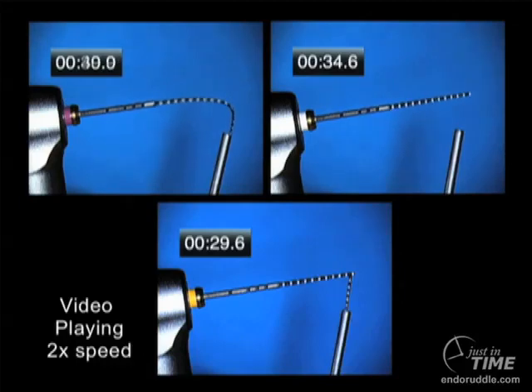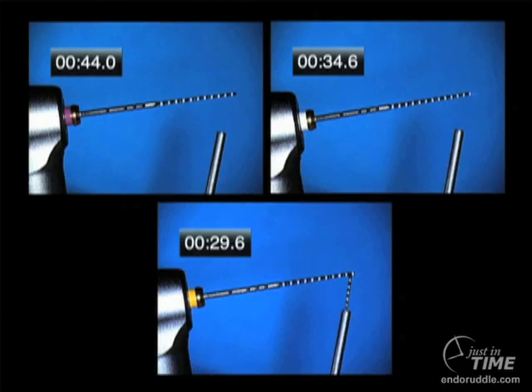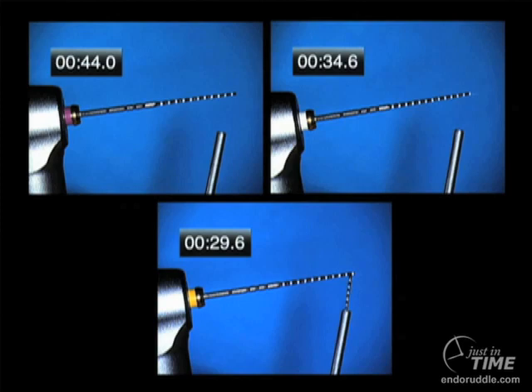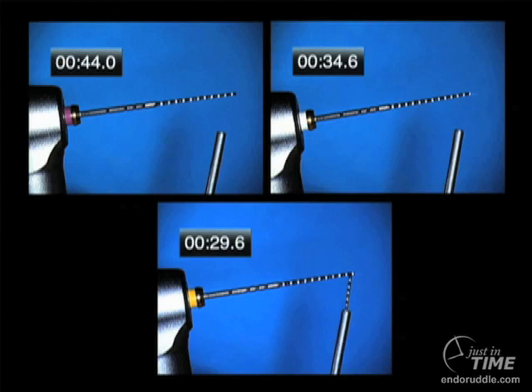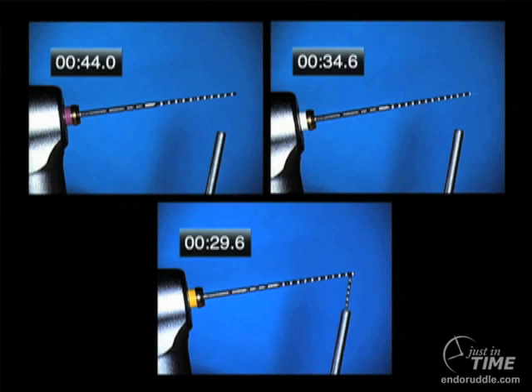Notice these instruments didn't have any torque on them — that's important — but they did have enormous cyclic fatigue. All these instruments were moving over 90 degrees of curvature into a loose tube. You can see the instruments were passing through significant cyclic fatigue demands. We got almost 30 seconds, almost 35 seconds, and finally 44 seconds on the smallest one. We would never be in a canal even a fraction that long, so this should give you confidence that these instruments are quite durable and resistant to fracture.